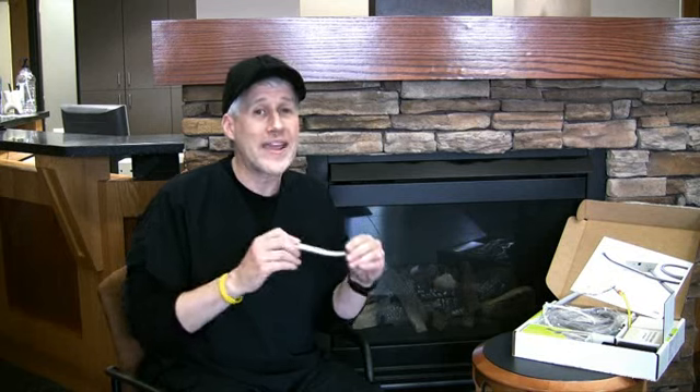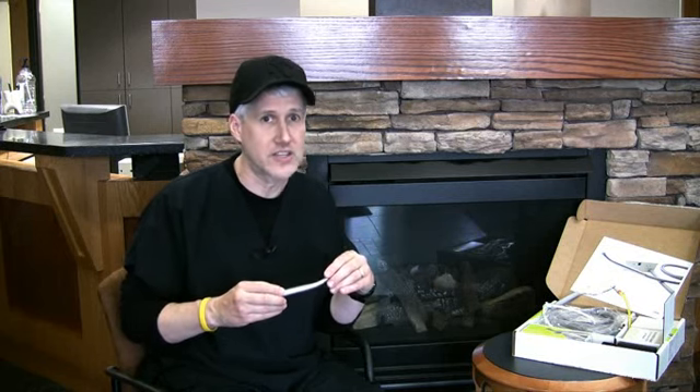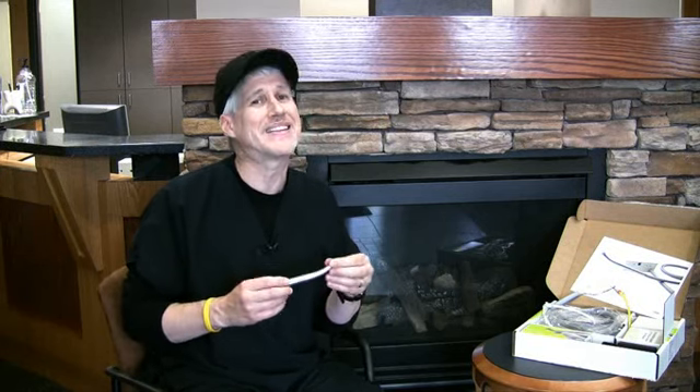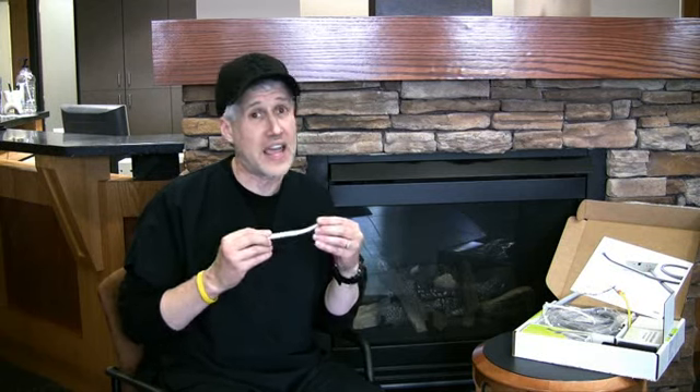I am really crazy about this. It is not an electric — it's not quite the same torque or strength as an electric. We'd call this the poor man's electric handpiece. On a scale of one to ten, with electric being a ten, I would give this a solid seven. It doesn't quite have the same torque as an electric, but it's got a lot of torque. We use it every day. And this is this month's article in Dental Products Report, so check it out for all the details.